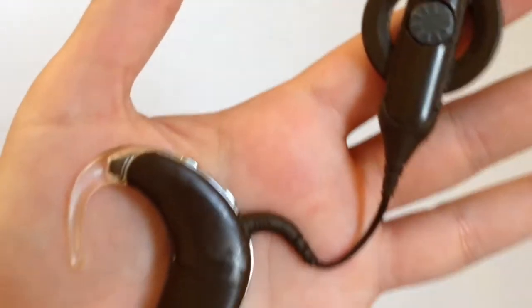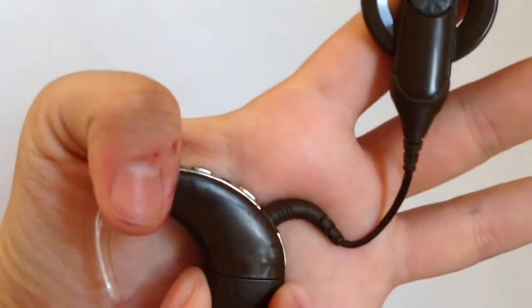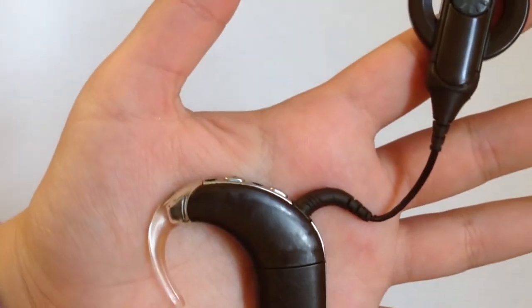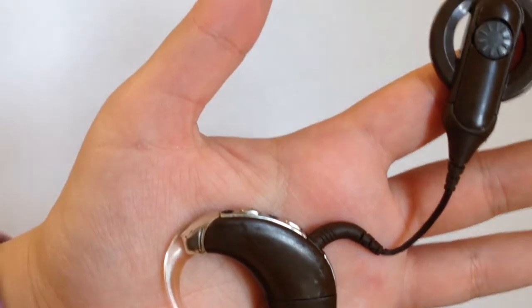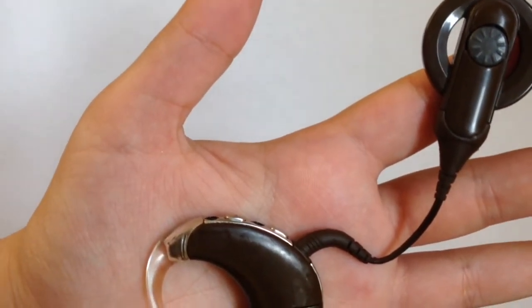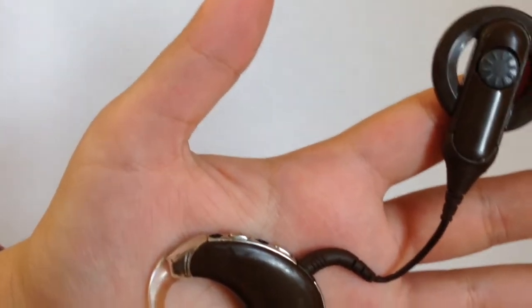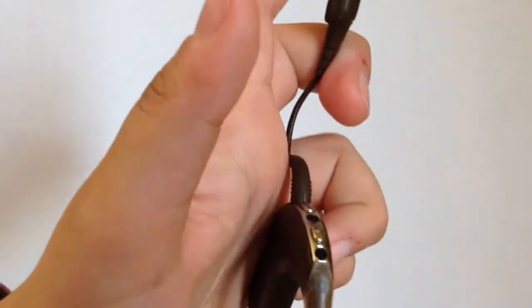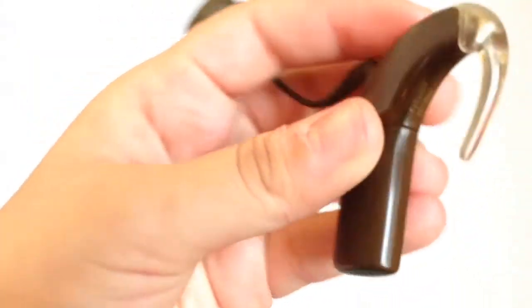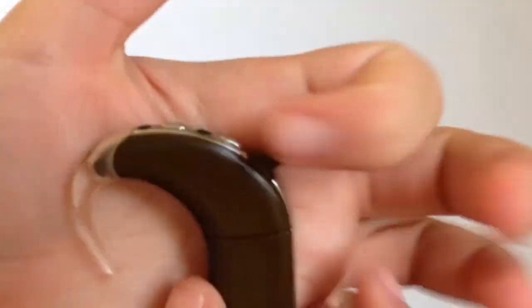So even though I have taken it off, I haven't had to for the past year and a half. A year and a half ago it broke and I had to replace it with this one. But I've only taken it off in practice to show you guys how to take it off. So hopefully you will benefit from this video and you will be able to take it off by the end.